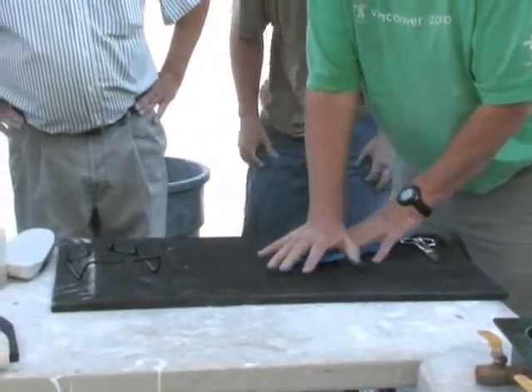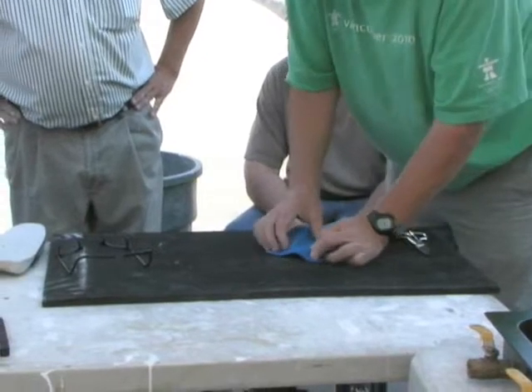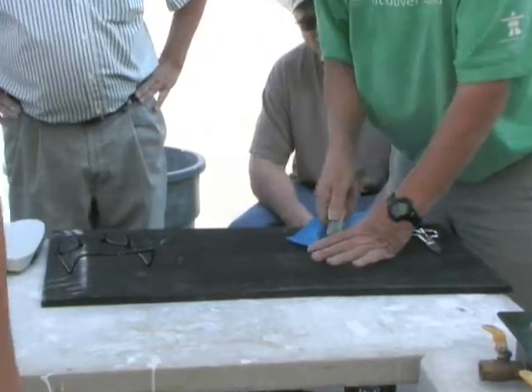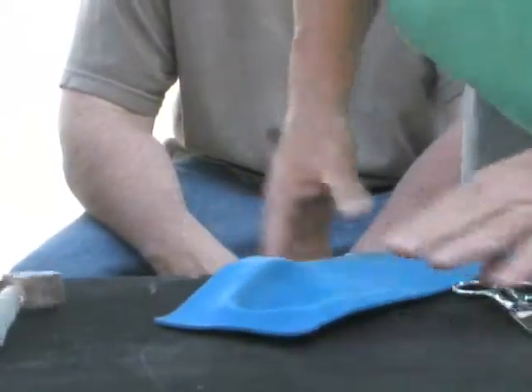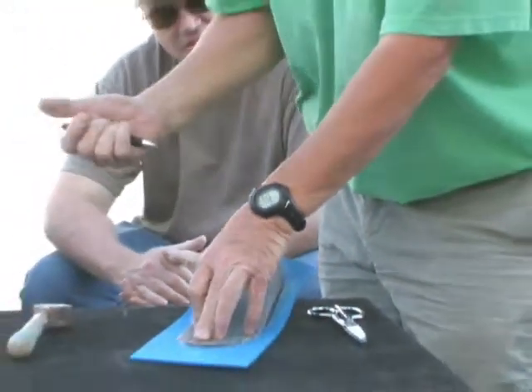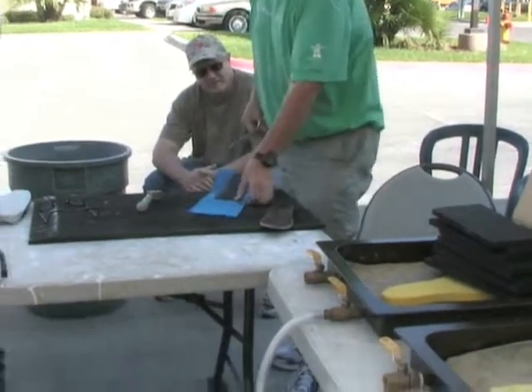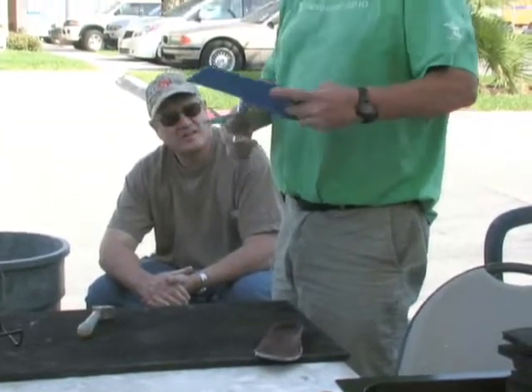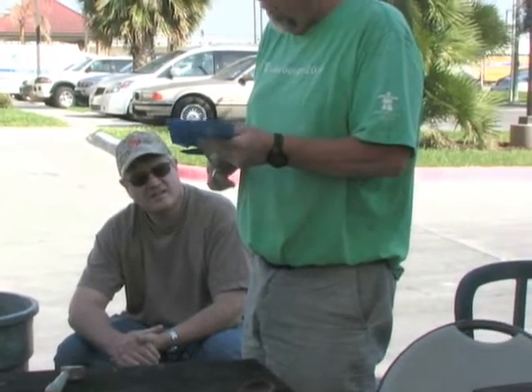The yellow ball goes in here and as I push down it expands — nice heat and pressure up into the side. I've got it worked out so it's going to be just fine. I push over the top of the orthotic, put a pen mark around it — not all the way, just around the edges. Then cutting it with scissors: you never cut all the way through. You cut just so it wants to go, just before it goes through, then come back in and grab another bite.